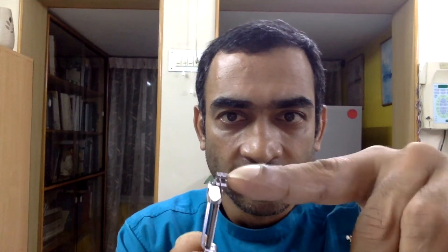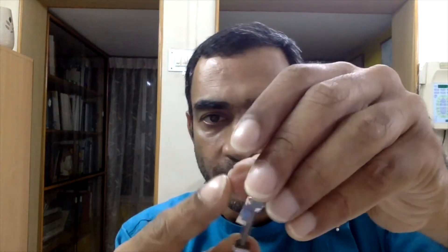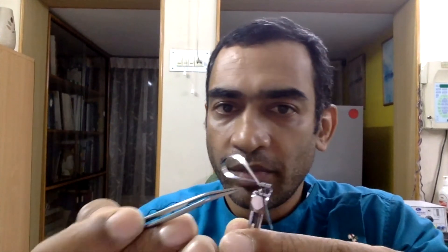Having done this, realize that this edge is really sharp. If it's sticking out into the patient's cheek inside the mouth, you're going to have lacerations. The retainer has built-in slots — one here, one here, one here, one here, and one angled slot. Place the band through the big slot and also into the angled slot, with the safe end against the cheek and the sharp bits facing toward the tooth.